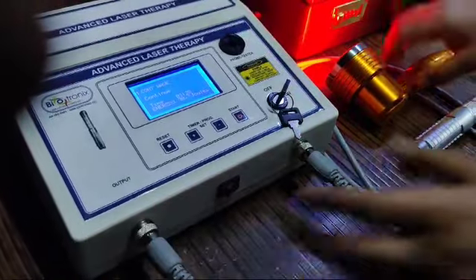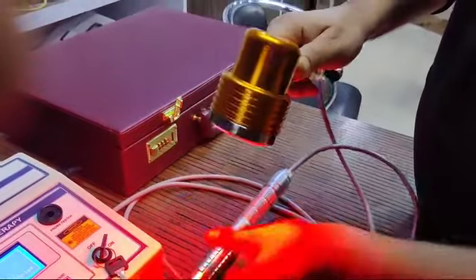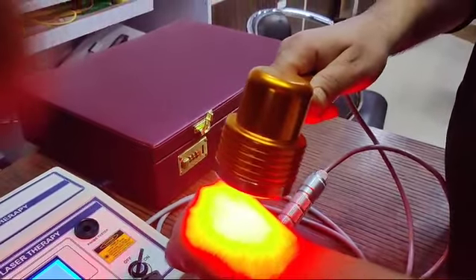The pointed probe has switched off and the cluster probe has started working. The cluster probe is there to cover the larger area of the body and the pointed one for the smaller areas.